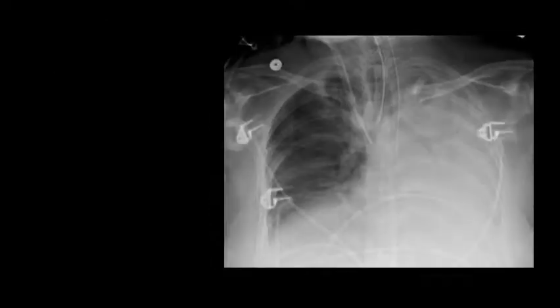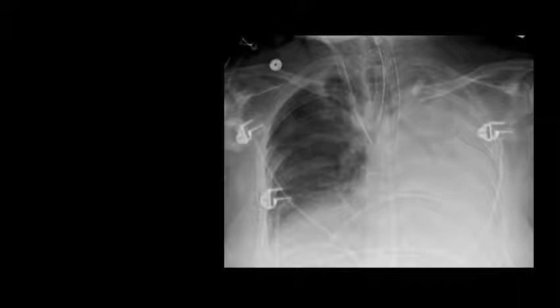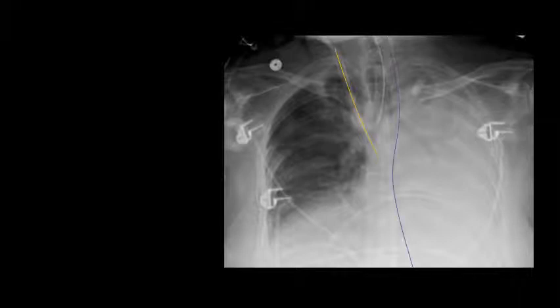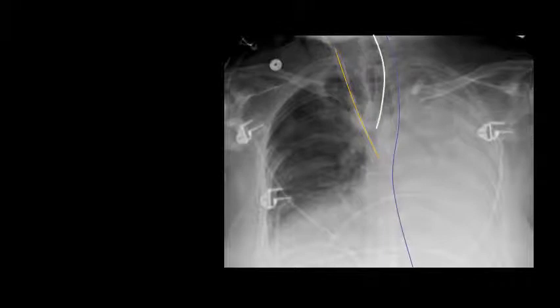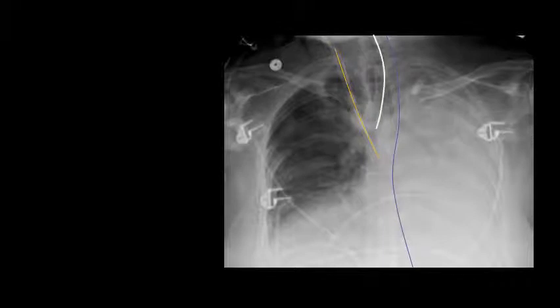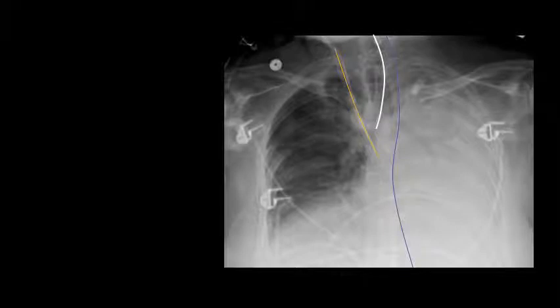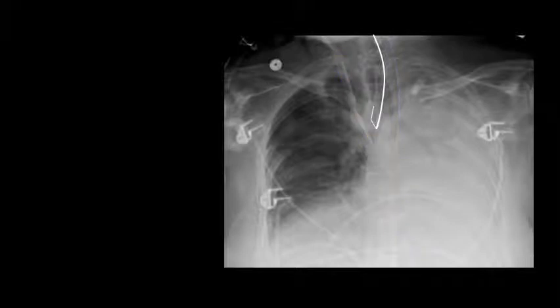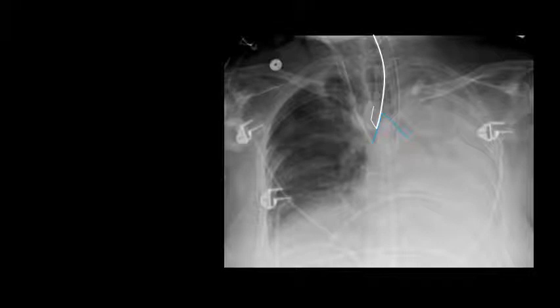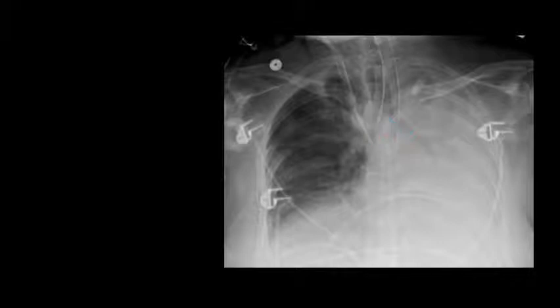Take a look at this example. Again, we have overlapping lines and tubes, but we can see the endotracheal tube outlined by a thick white line. The carina is slightly more difficult to distinguish, but we do see that the tip of the endotracheal tube goes beyond the carina. In this case, the right main stem bronchus intubation is resulting in collapse of the left lung.